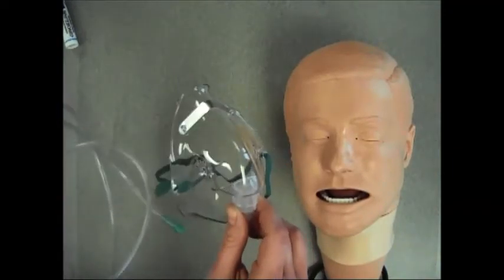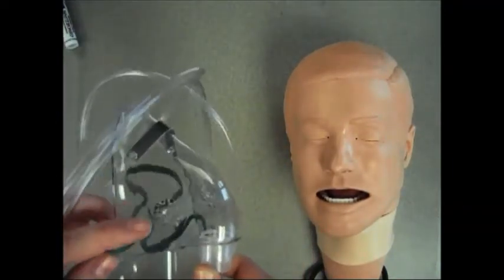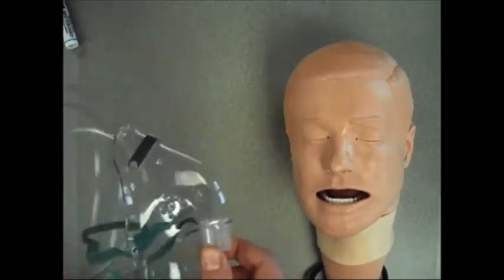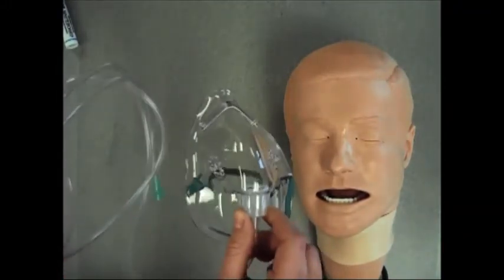On the sides of the simple face mask, there are two exhalation ports that you can see here to allow room air to be mixed with the oxygen.